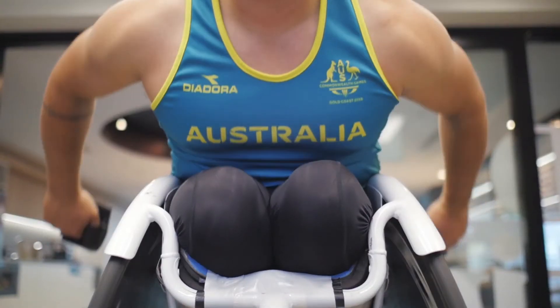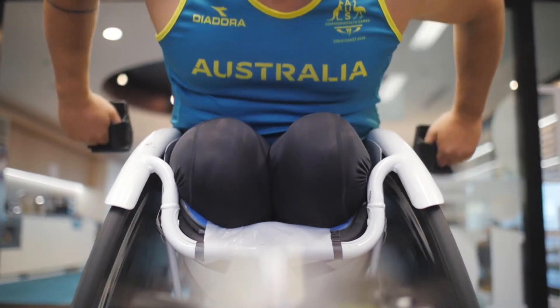That inconsistency led to potential wrist and hand injuries because the gloves weren't consistent. Now, with the consistency of the gloves, it gives me the opportunity to know that my push stroke is going to be strong, consistent, and hopefully fast.